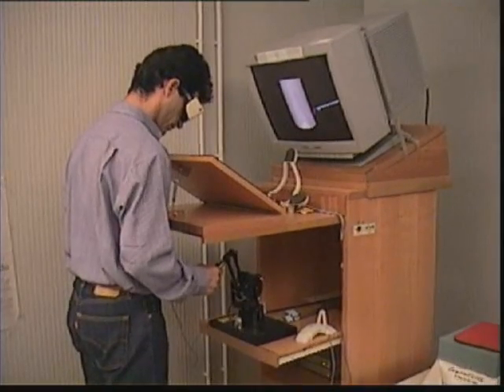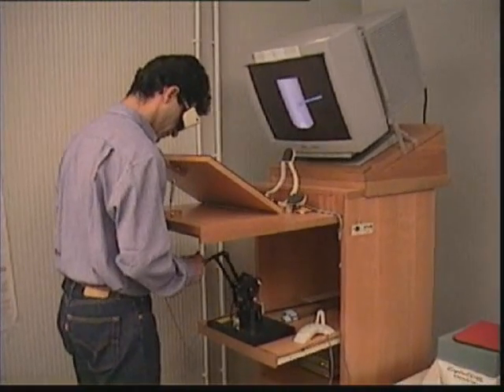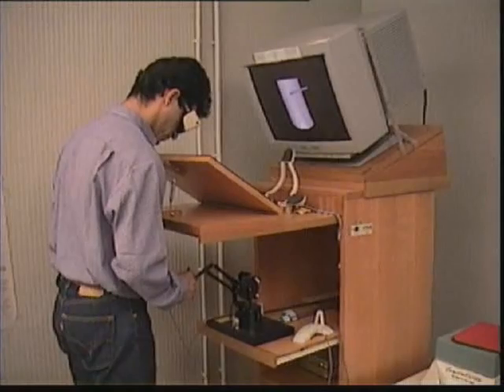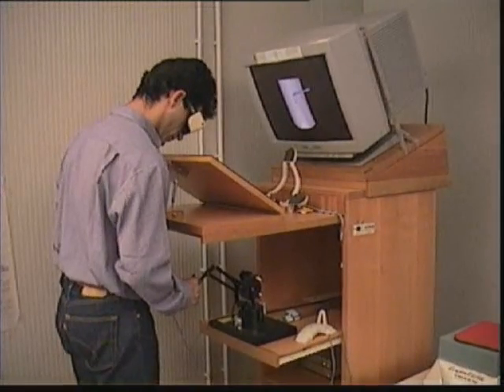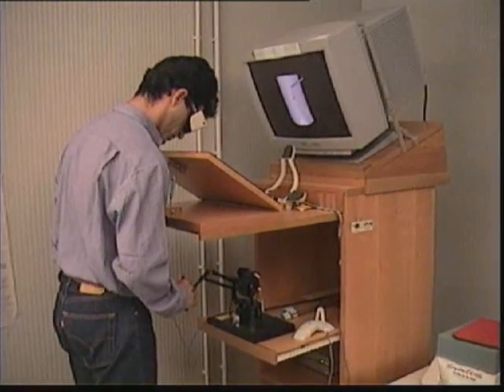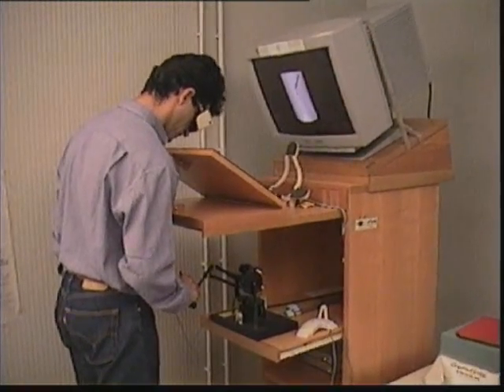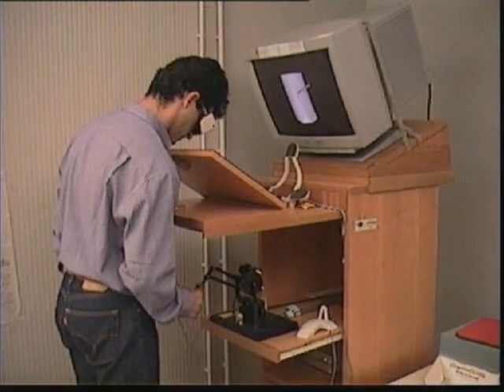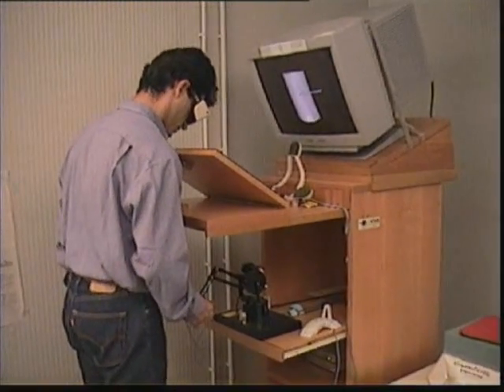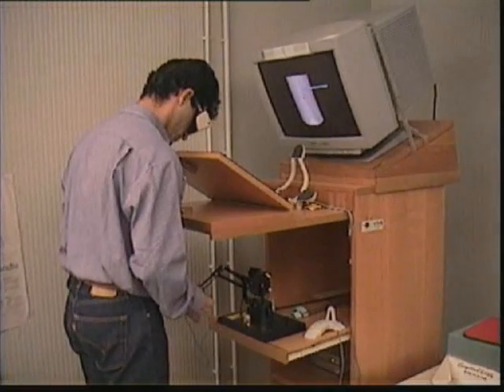We have developed a catheter insertion simulation system which takes as input patient data acquired with a standard medical scanner, and which gives the impression of a patient laying down on a surgical table while undergoing an operation.